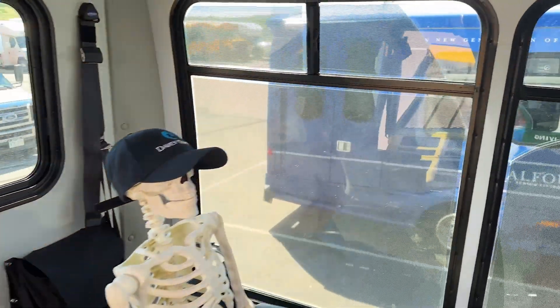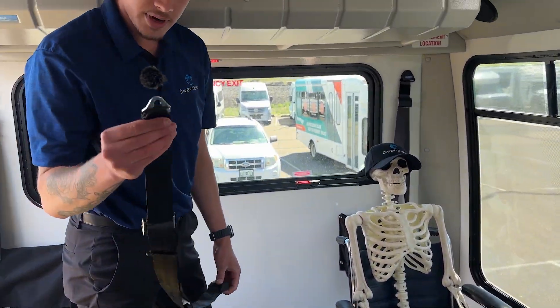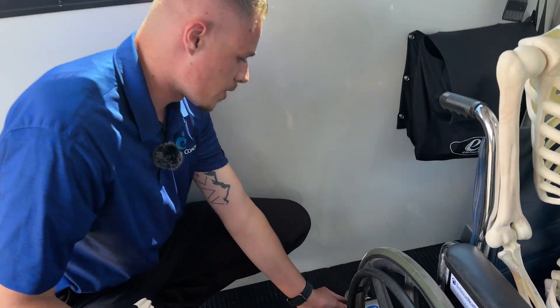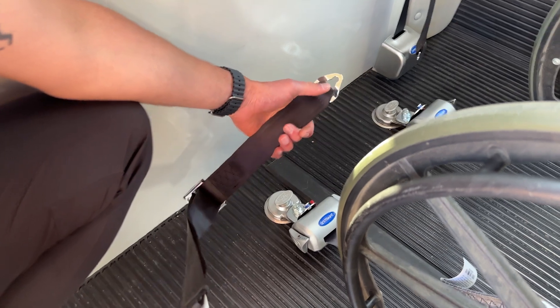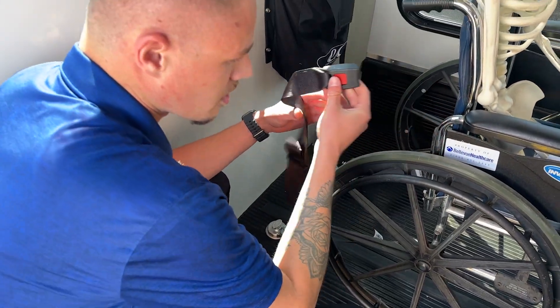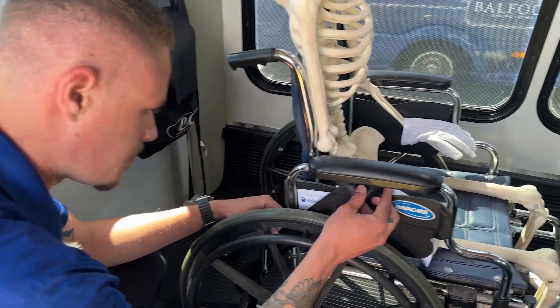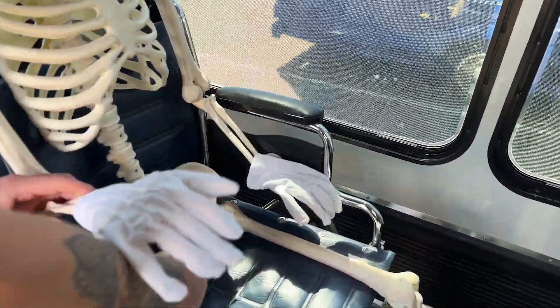Now we're going to attach the shoulder harness to the lap belt. In your bag you'll find this black lap belt. There's a little piece that connects to the rear securement, and then we pull the strap over the shoulder just like a traditional seatbelt. On the back right side of this position, put this little piece around and pull on the tab until you hear it snap — that's how you know it's set and secured. Take the belt, run it up between the cracks and crevices over this black piece and onto the passenger's lap. They can hold that there.